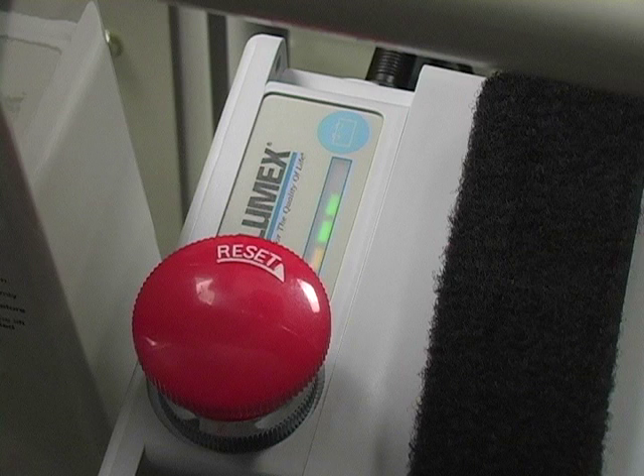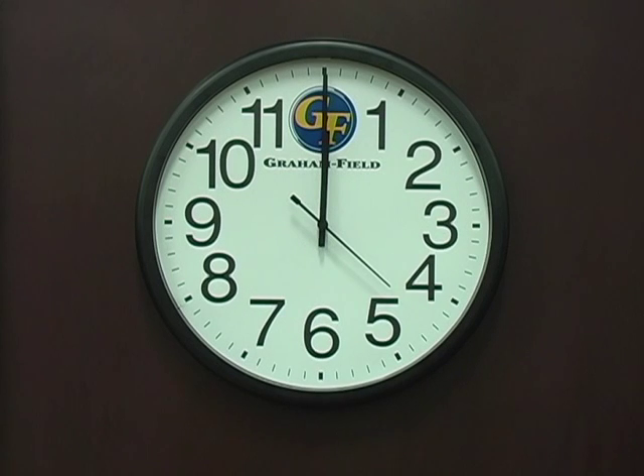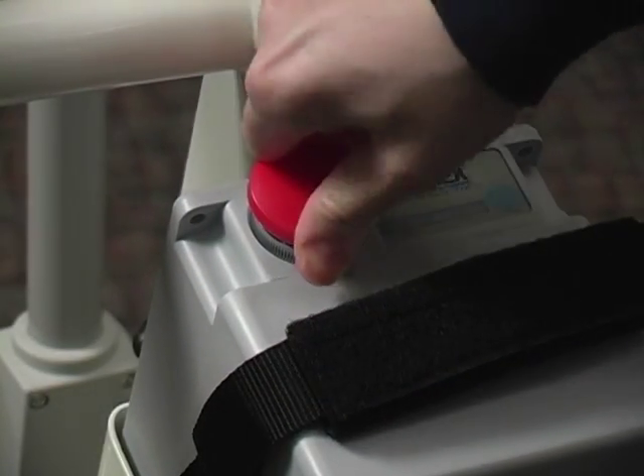When the red light glows, you must recharge the battery. You will also get an audible low voltage warning beep for low battery charge. Recharging takes three to four hours from one green light. It will take approximately seven to nine hours to fully charge from the red light. Allowing the battery to run down to less than one green light can shorten or damage the battery. Remember that your red reset button must be in the up position for charging.